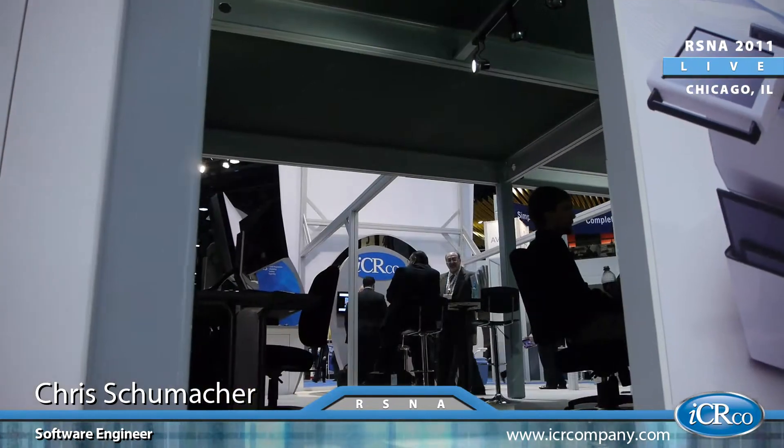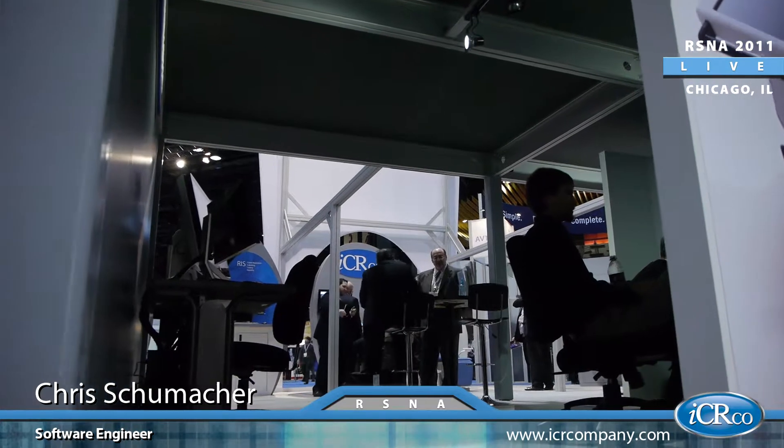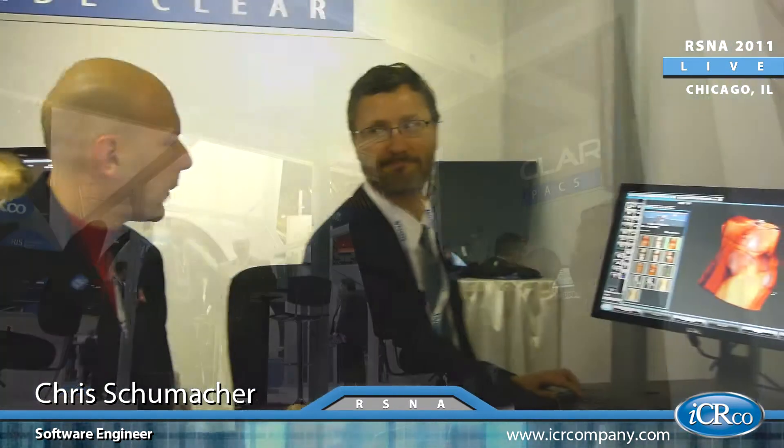We have a lot of different settings, and that's the basic overview for now. 3D imaging — just another innovative product from ICRCO.